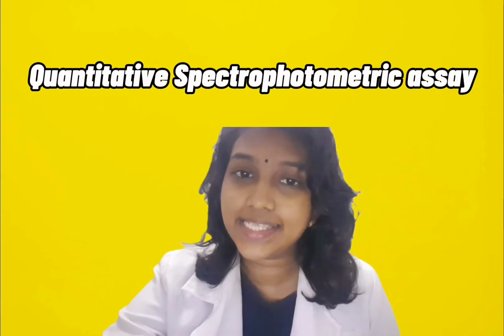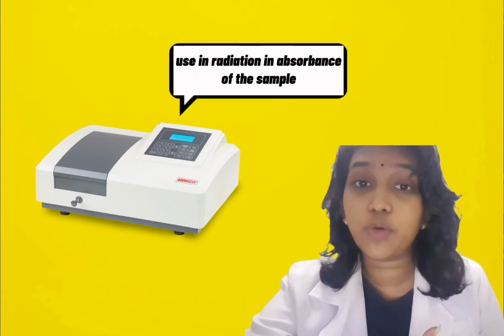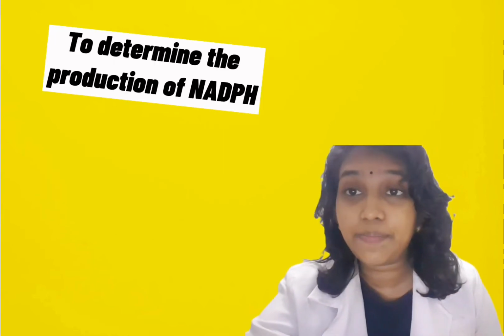The G6PD advanced lab test is a quantitative spectrophotometric assay. The assay is measured by a spectrophotometer, which uses the absorption of radiation by the sample at 340 nm over time to determine the production of NADPH.